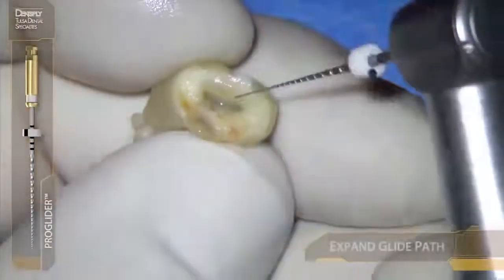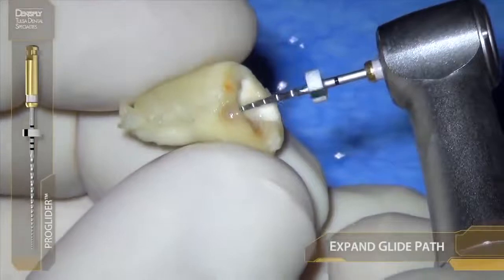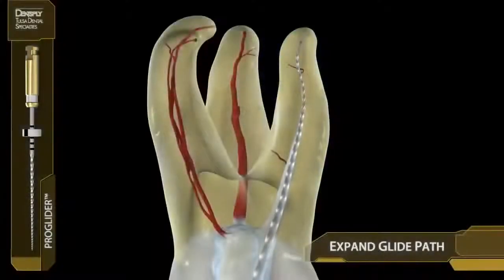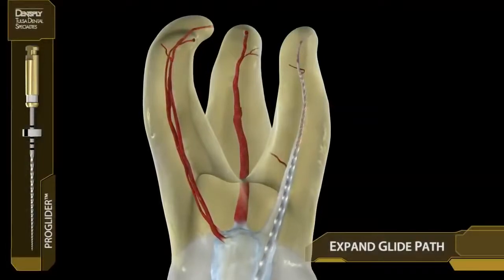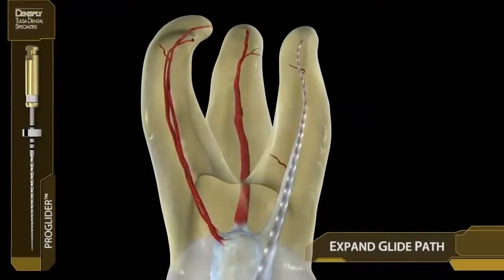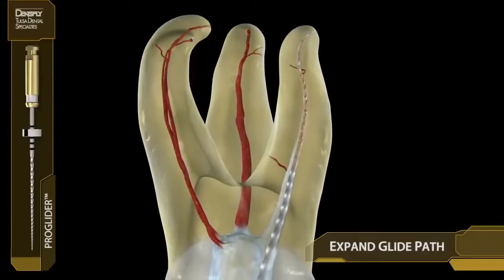Some colleagues prefer to expand the glide path with a #15 file or the new Pro Glider, which is a single mechanical baby ProTaper that can very successfully expand the glide path for any NITI system including reciprocation.